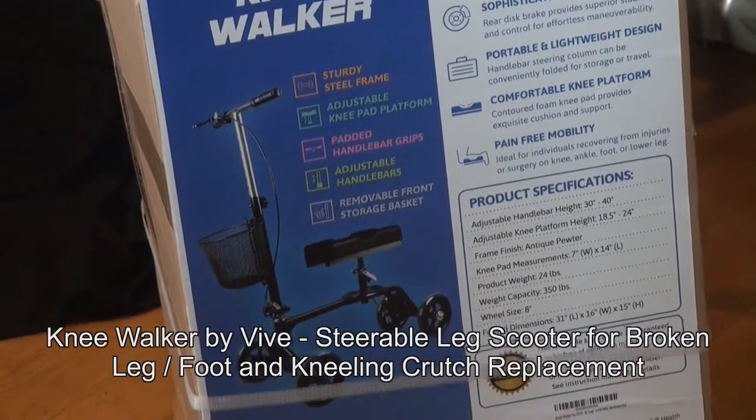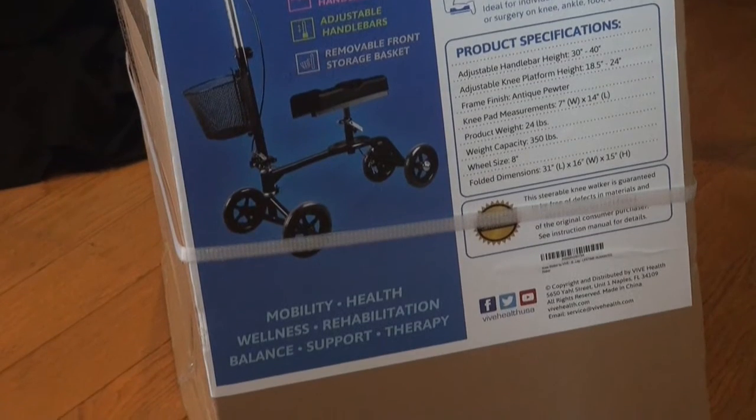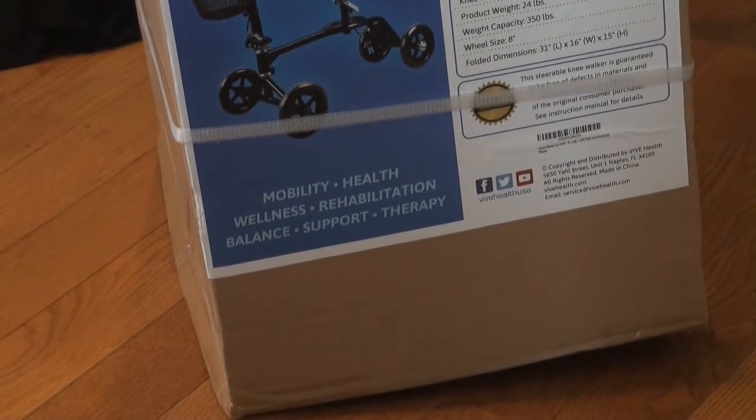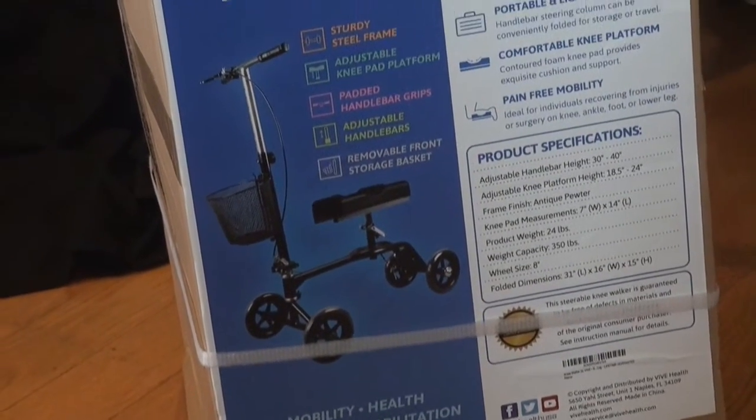This is how I got it out of the Amazon shipping box. So even though it's big like this, it comes in a box — a box within a box. And this is how the packaging looks like.